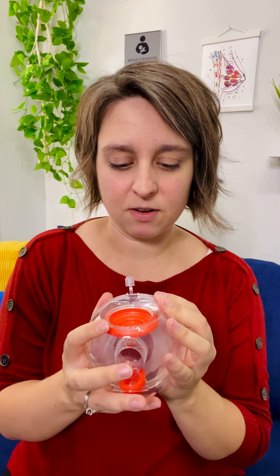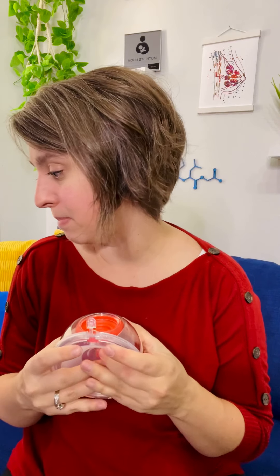It is almost identical in size to other cups you'll see. It's quite large, but there's a motor on top, so we're not going for super discreet pumping like you would with something that fits totally in the bra. But it's very easy to set up — the parts only fit on one way.